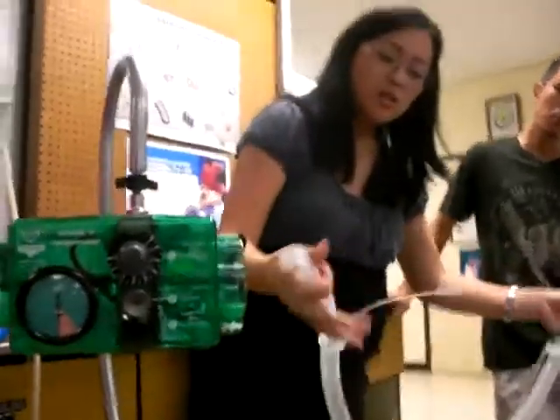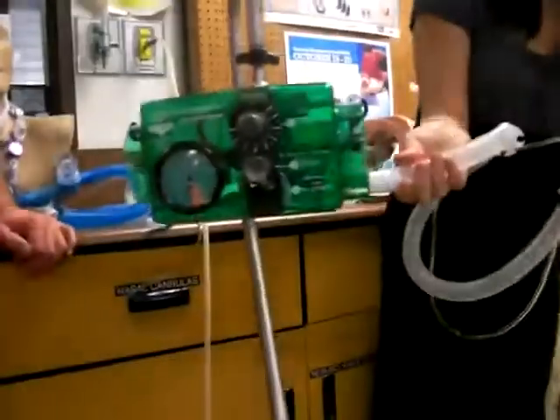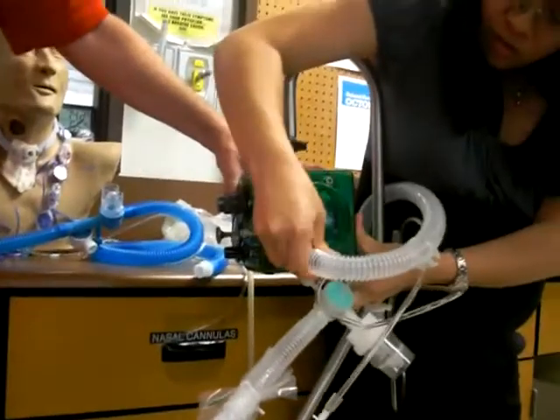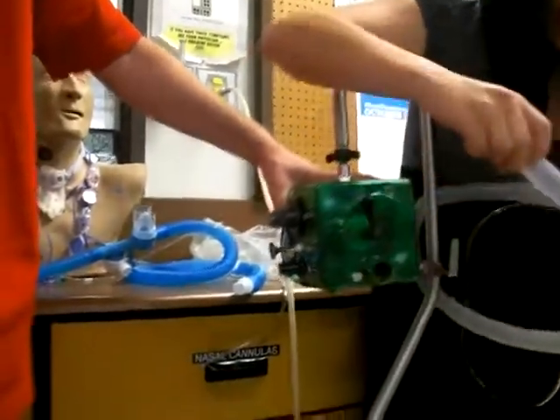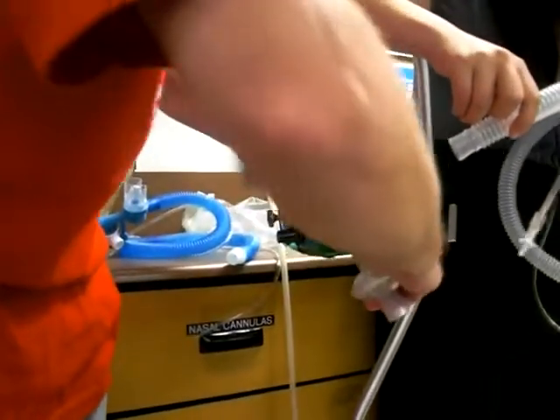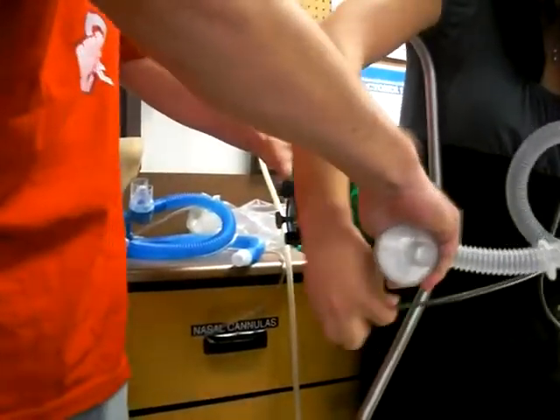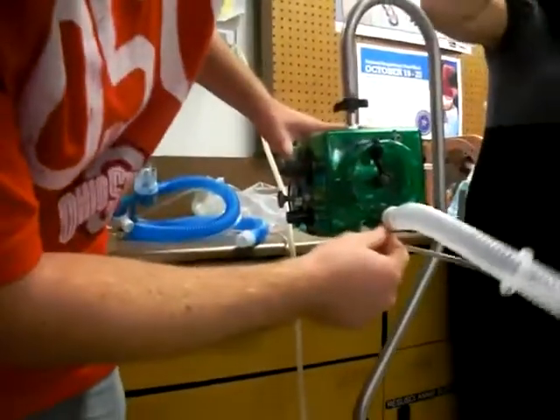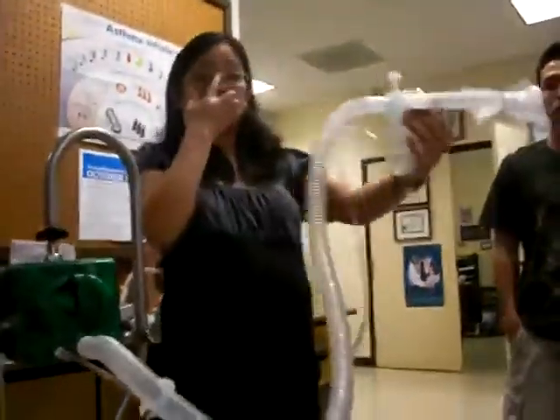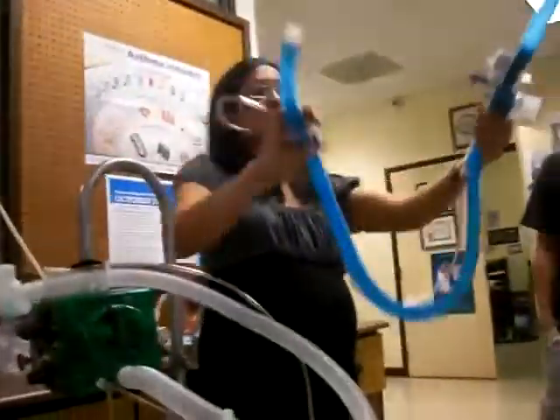So if you put it in — remember I said you need an adapter? This circuit already comes with an adapter, so that goes in there. Put that in the wrong angle. Take that off and hook this one up. So that's the way that is.